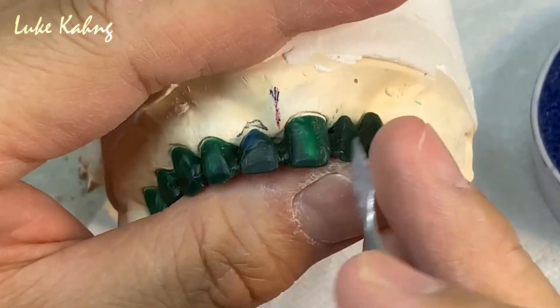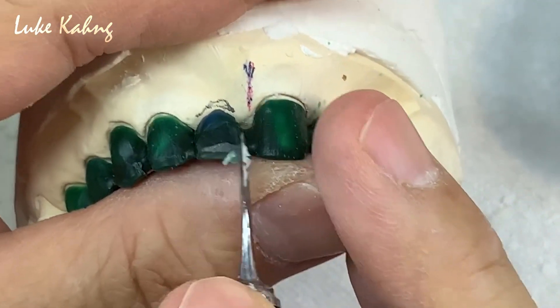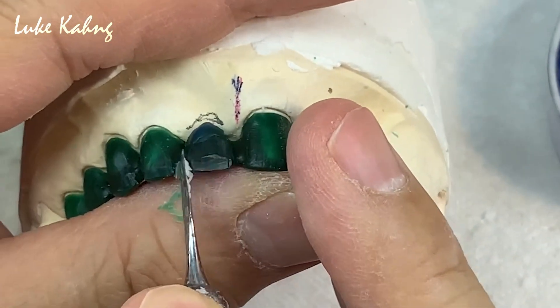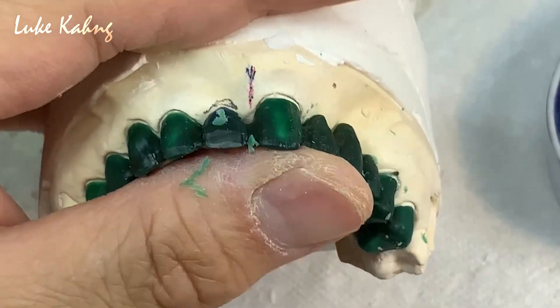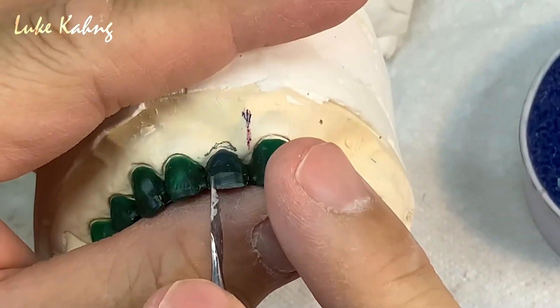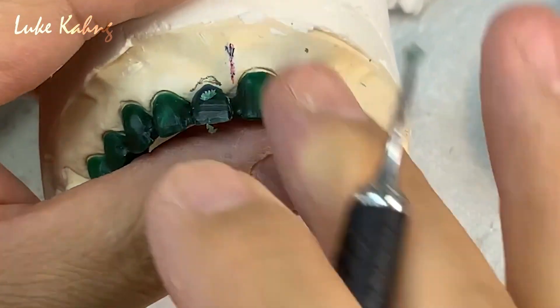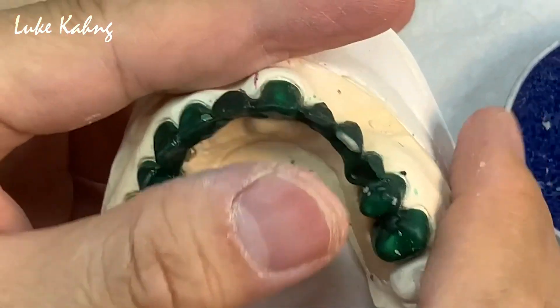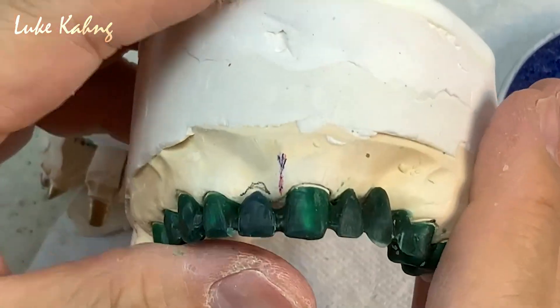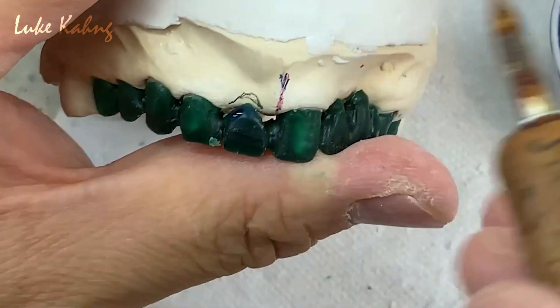This height of contour — I can grind down from the inside, which is fat compared to this. This is a minimum thickness, I would say 0.4 millimeters. So just move it like here, like here. Metal ceramic — you see the contour — that's 8 and 9. First, add it here.